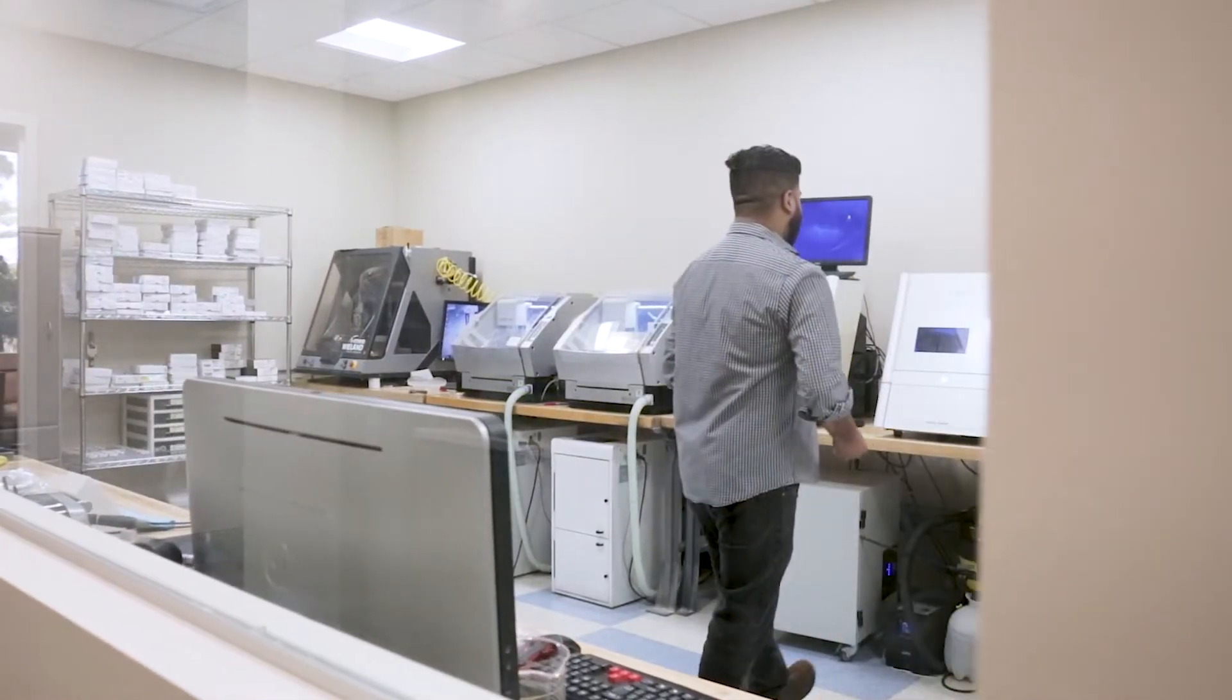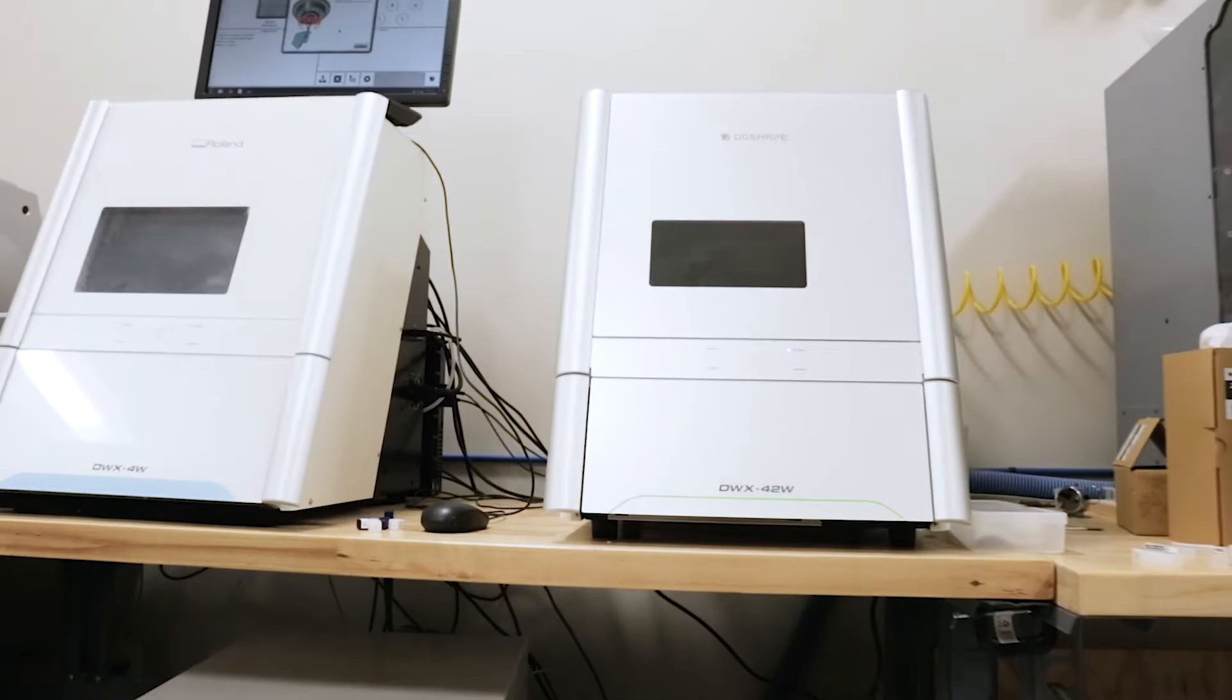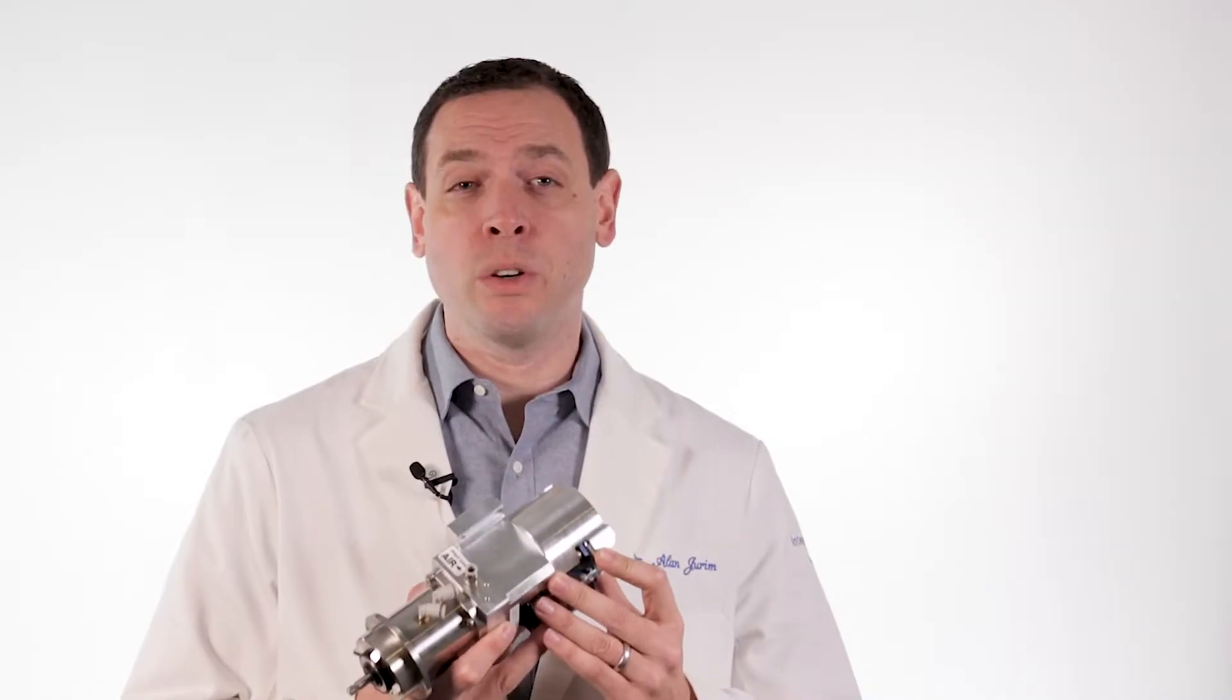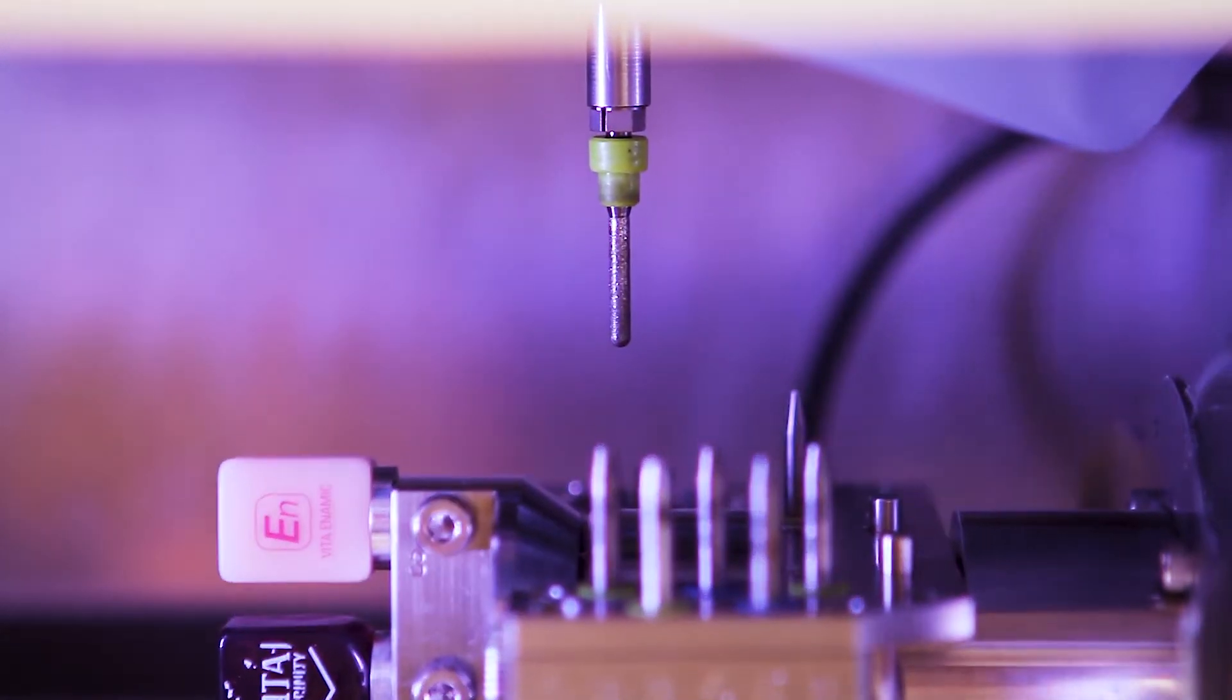Some of the things that I'm so impressed about with the DWX 42W is the fact that it has this new enhanced spindle, more heavy duty, which equates to faster mill time and a better restoration with better accuracy.